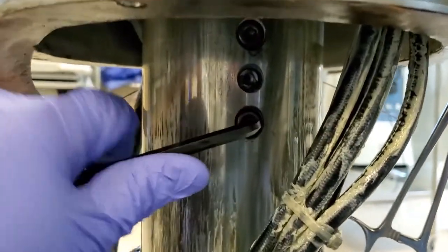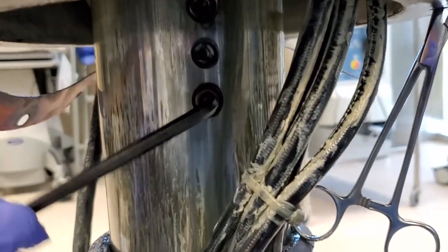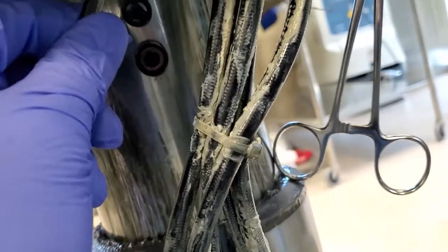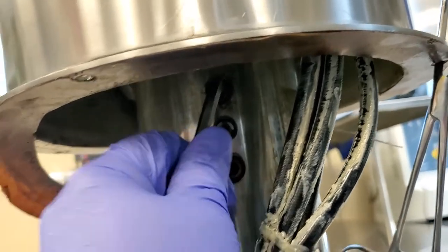Alright guys, I have found the culprit. You can see that this is how tight it was when I walked up. I can probably tighten it down several turns. Yeah, both of them are loose.